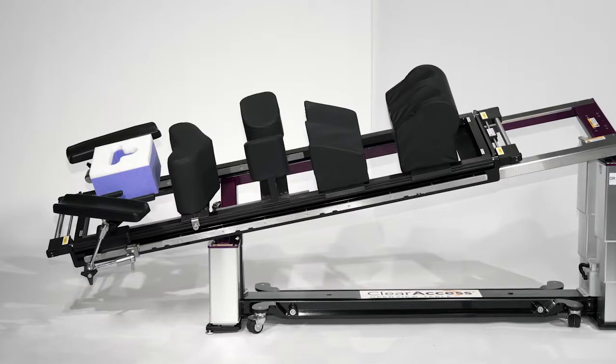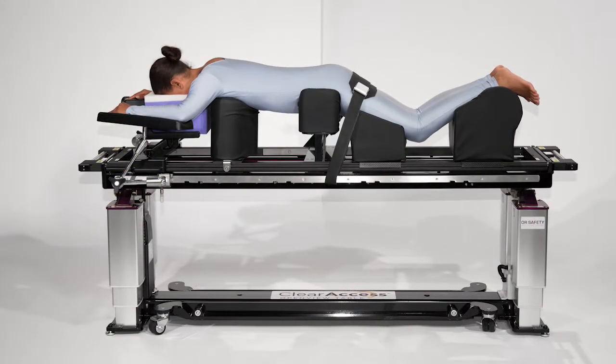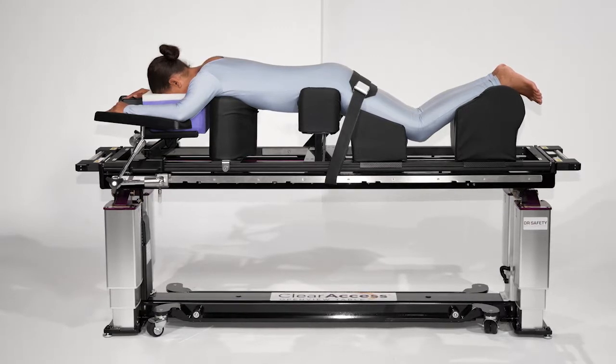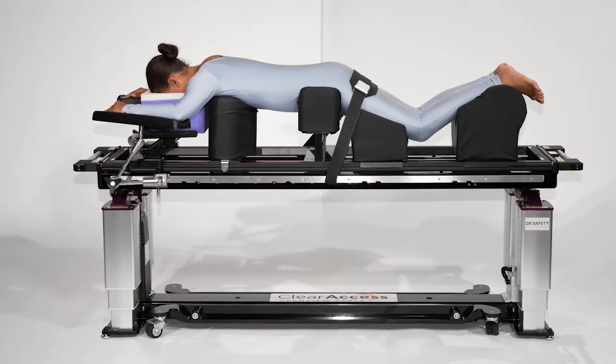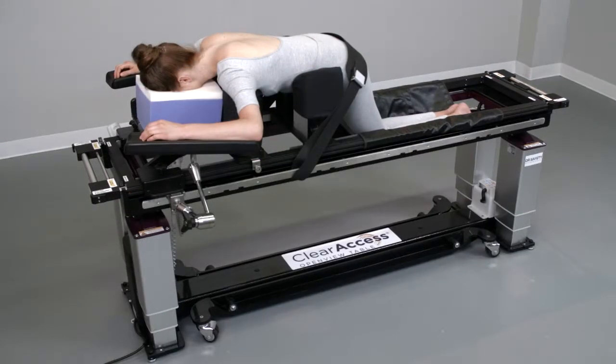Setup of all included prone positioning components of the ClearAccess new standard shown here can be completed in a few minutes. Let's review the correct setup of these components and alternative leg management approaches including the optional leg sling.